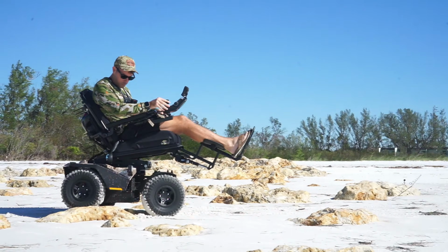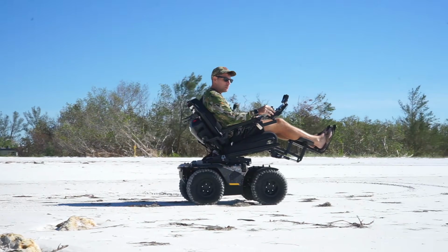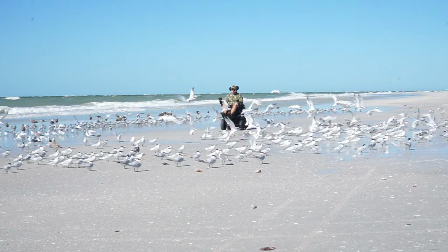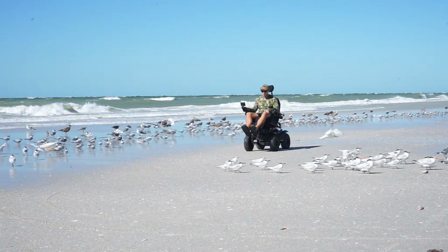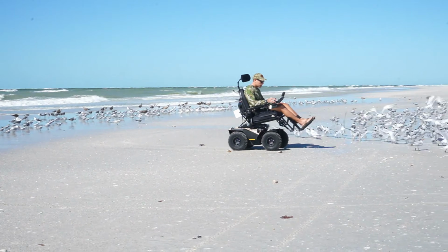And then with the TB3 seating, you're also able to get seat lift, tilt, recline, and electric legs. This particular unit comes standard with the 100 amp hour batteries. They say the range is 16 miles, but I've gotten a lot of comments and feedback that people are taking these on the beach and through snow and different terrain, creating a lot of resistance on the motors.